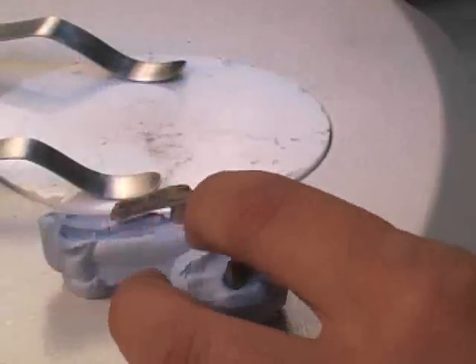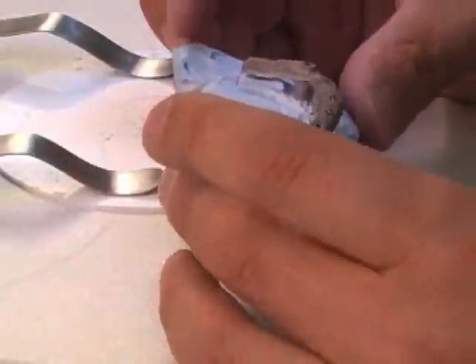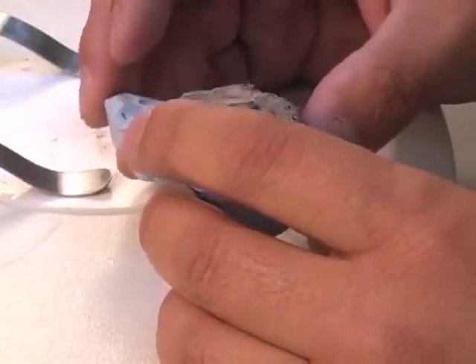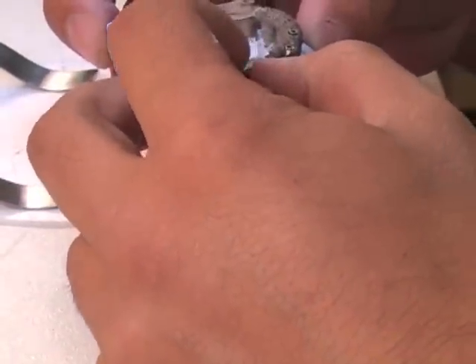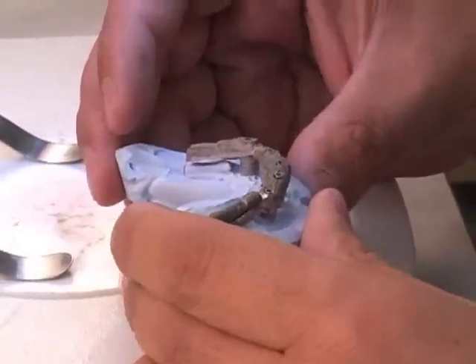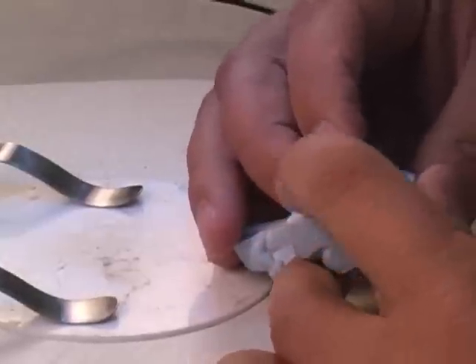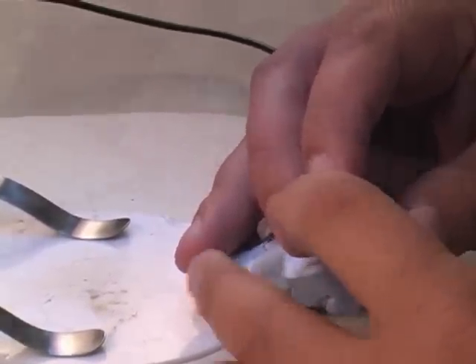What we're doing here is an implant bar — we need to add a little height to it just to help with the retention of the denture that's going to be going over the top. We're going to be welding this piece onto the top, and what we're going to be using is gold wire, because this is a high-content palladium metal. Some of the difficulties with palladium are the fracturing problems, and gold wire solves that problem.